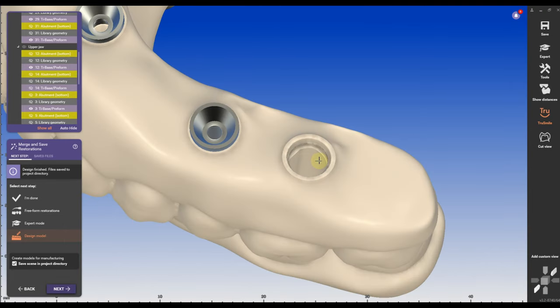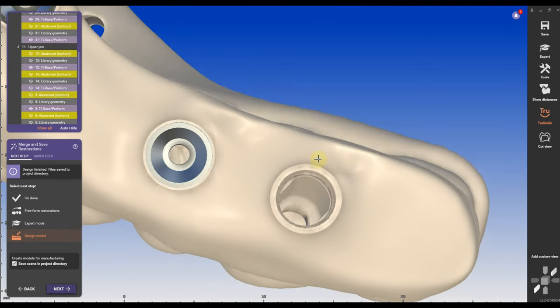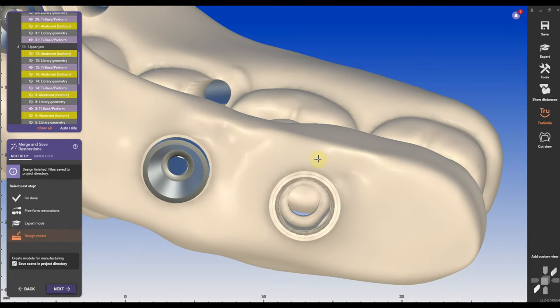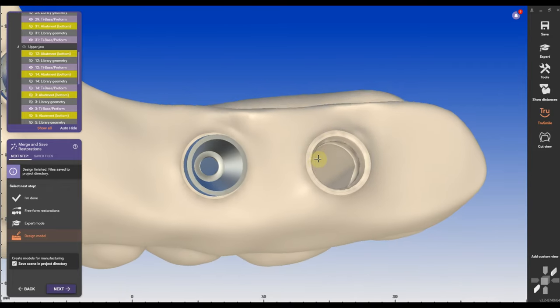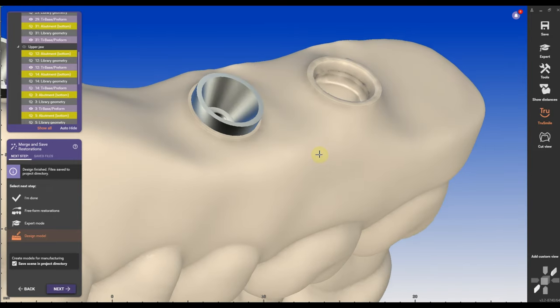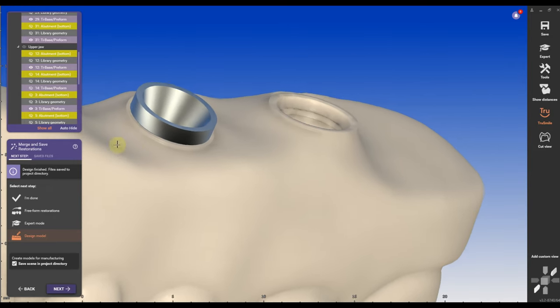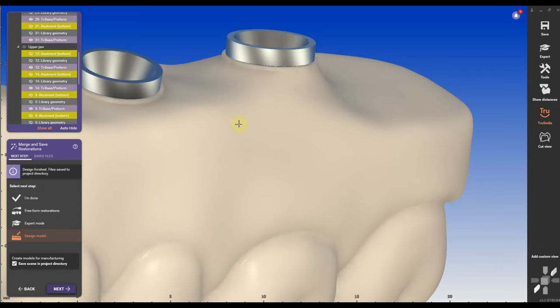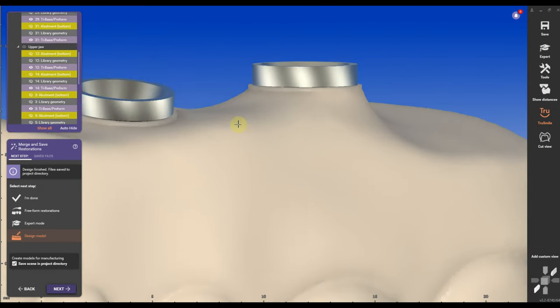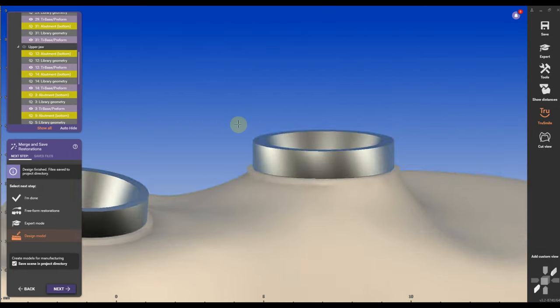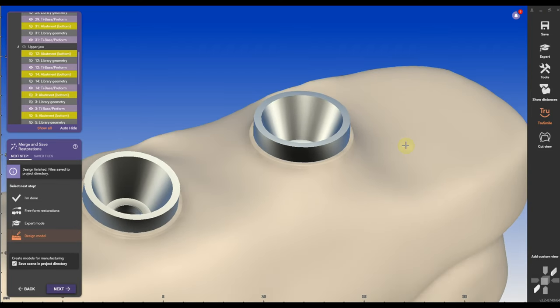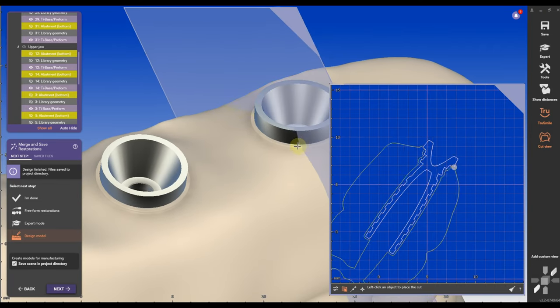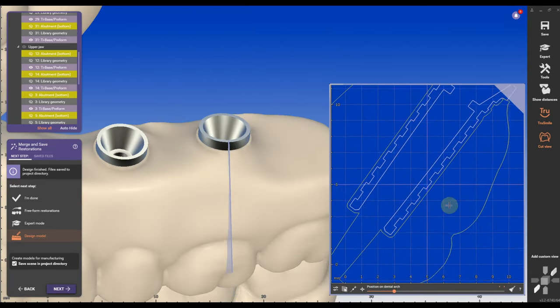The interface of the material is really clean. Unlike if you scan it in, you have all these impressions of the tie base in the material, which can make it difficult for the mills and difficult for the tie base to fit into the restoration at a later point. The base of the tie base fits perfectly into the material. It makes it a very clean workflow.